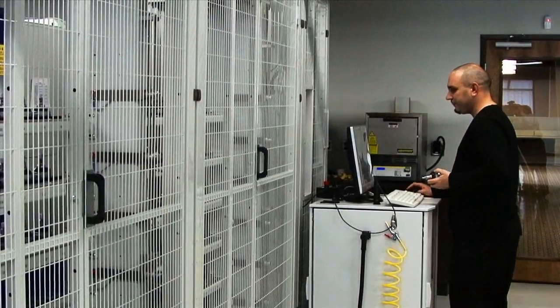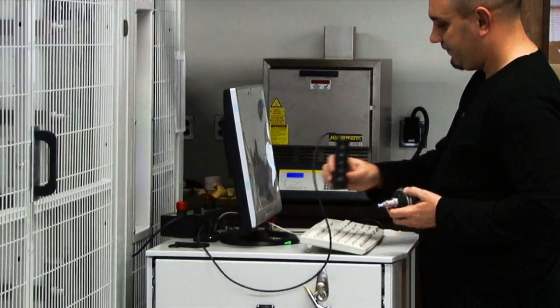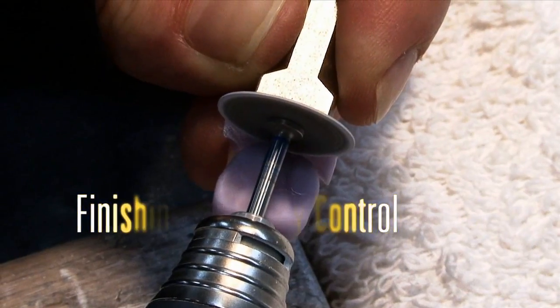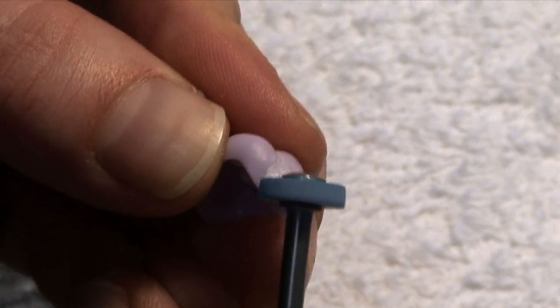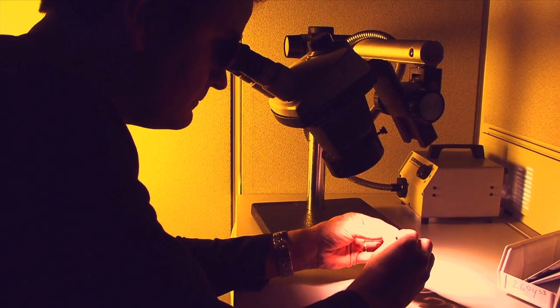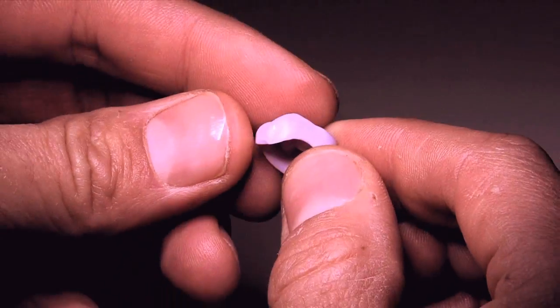The technician re-scans the mount, which is now ready for finishing and quality control. The mandrel is removed and the restoration is thoroughly examined. The Diadem team is committed and passionate about quality.